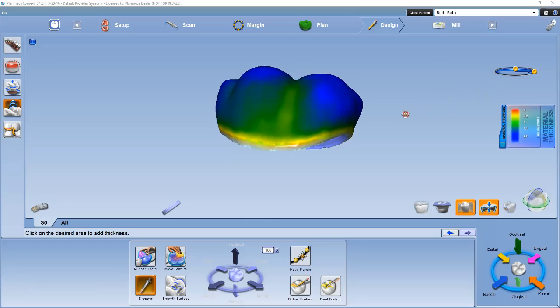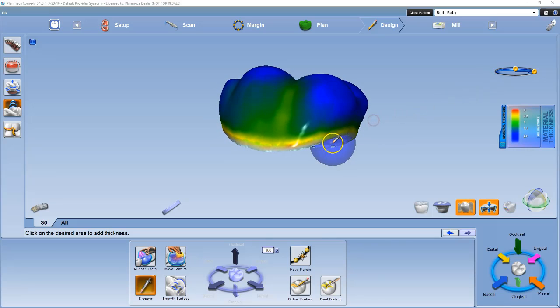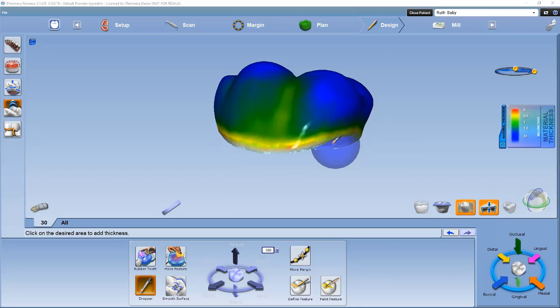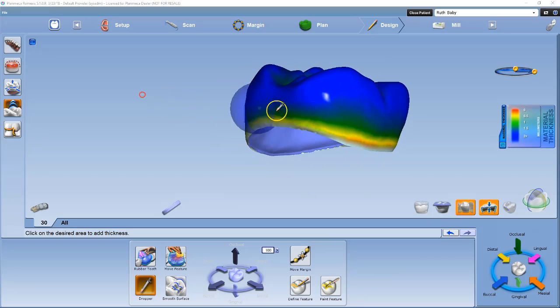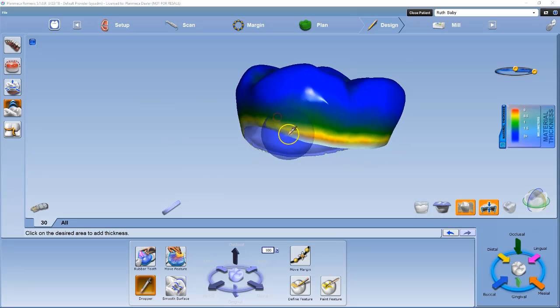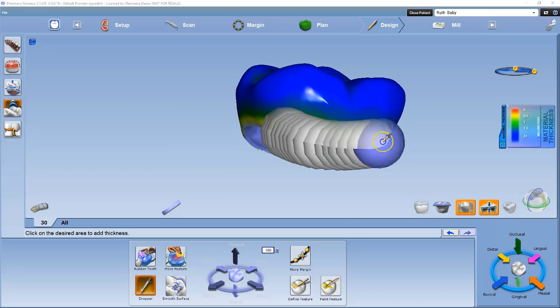Left-click material thickness and hide model. We are going to add to the red or thin areas. We can either left-click to the area one click at a time, or we can left-click and hold and add a swoosh along the margin.